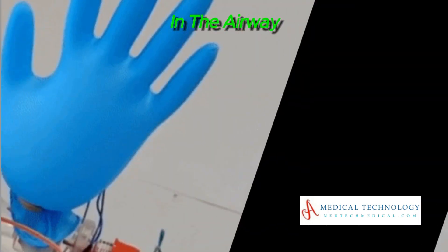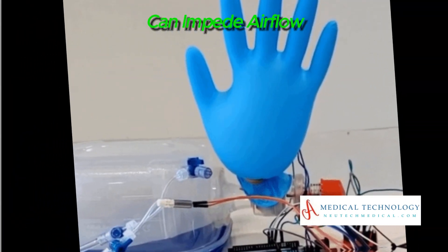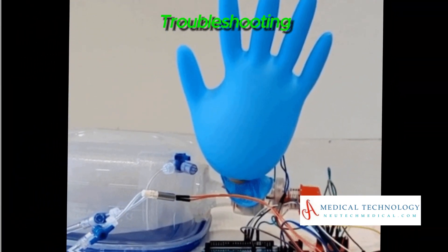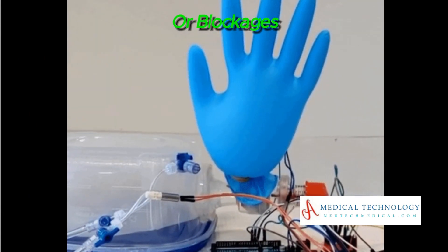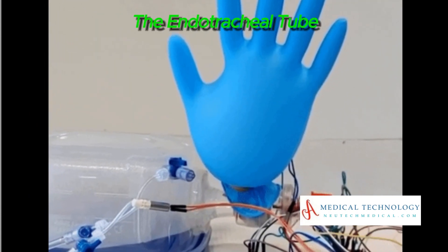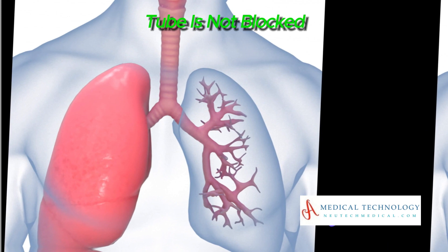Issue: Obstruction in the airway tubing or circuit can impede airflow. Troubleshooting: Inspect the tubing for kinks or blockages. Ensure that the endotracheal tube or tracheostomy tube is not blocked.